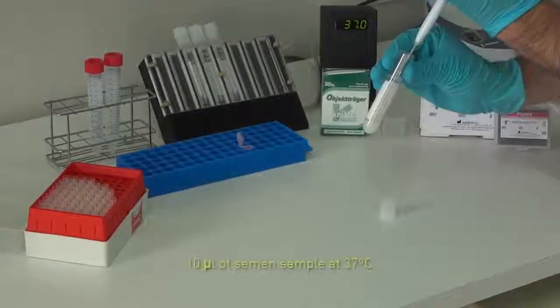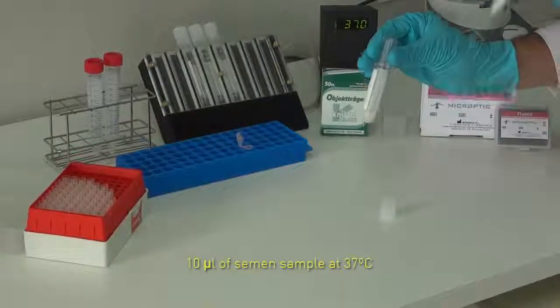First, put 10 microliters of semen sample in an empty Eppendorf.